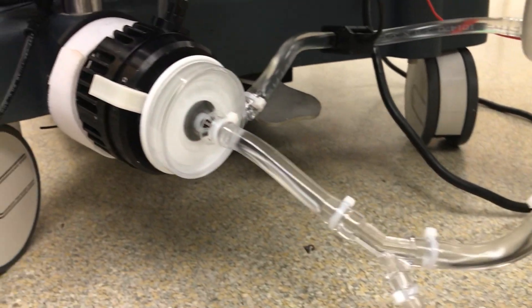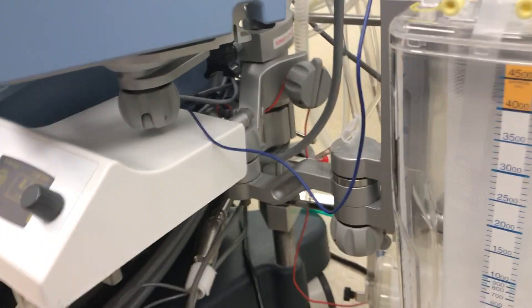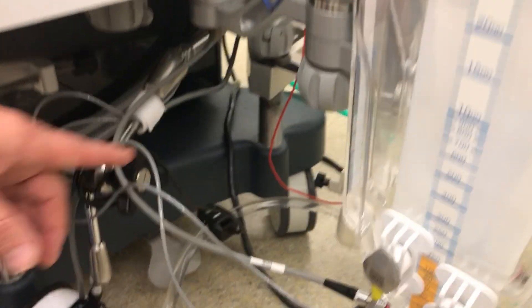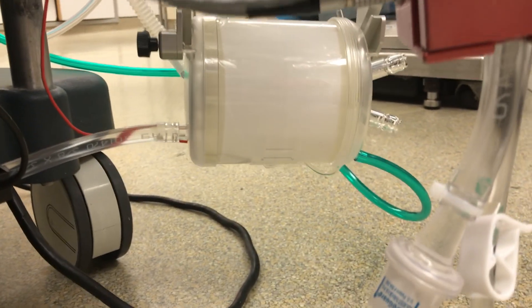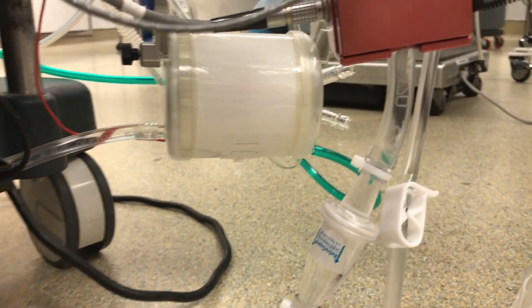This is a constrained vortex pump, and right now it's spinning at 1100 RPM and generating three liters of flow. From there it goes through a sensor that tells us how many liters it is and into the oxygenator. The oxygenator is the large canister there, and it's got a bunch of tiny little tubes going one direction through which the gas will flow and the blood will flow around the outside.